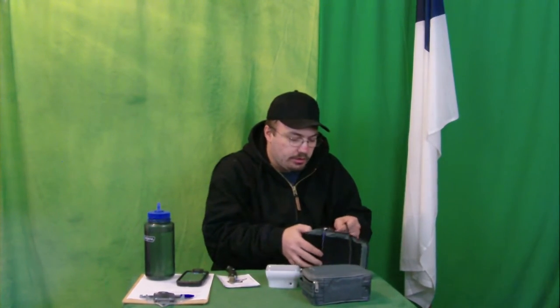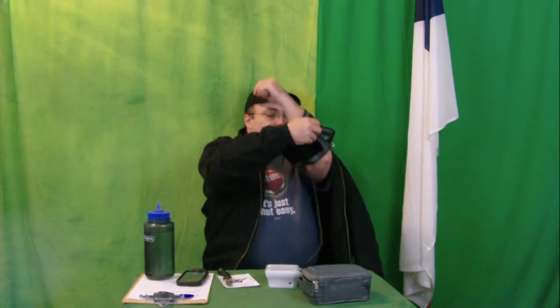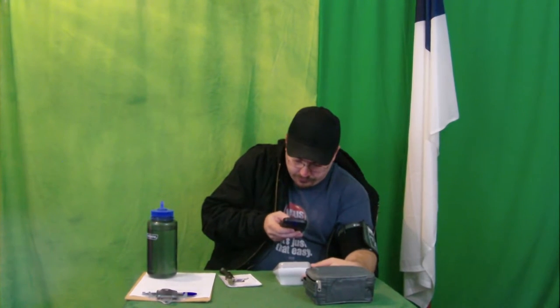And we're going to try to use this machine. So I need to get my coat off, even in this cold environment, just for you. We're going to put this on the upper arm like we should. And we're going to hit start/stop. People always complain to me that these things pinch your arm, that they hurt. We're going to give it a shot, see what it does. We've got a nice little picture of it working. It's working hard — it's inflating the cuff. It's doing its thing, it's finally getting tight. It's got a little thing with a fist on it.